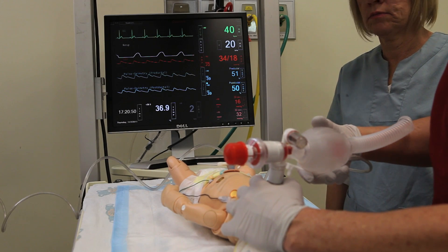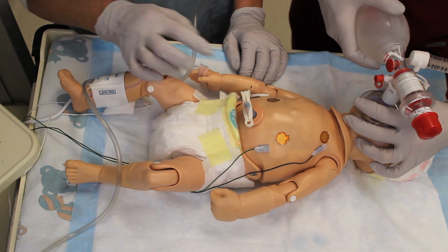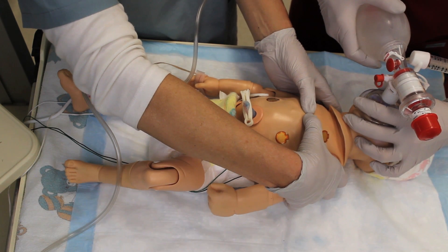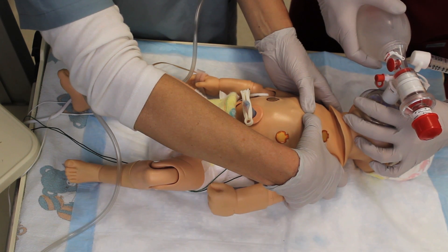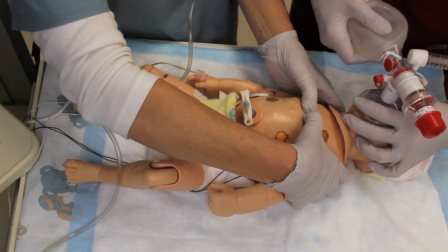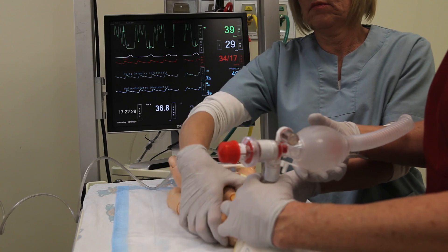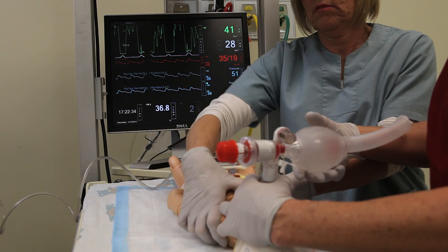Now we're going to show you how to coordinate chest compressions with bag mask ventilation. Find the xiphoid process and then find the internipple line. Give compressions right in that space between the nipples because if you don't give compressions there, it won't register the correct rate. We're going to demonstrate coordinated compressions to ventilations following the NRP algorithm of 3 to 1. On the ECG monitor, as she gives compressions, the ECG reflects that something is going on, and the rhythm is no longer regular. You can also see the ventilations being administered.